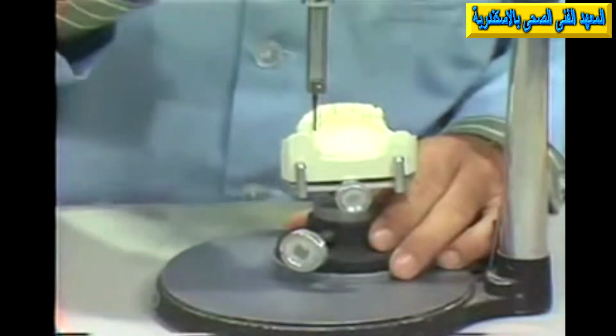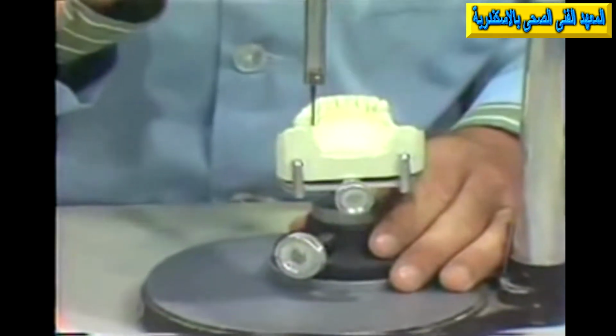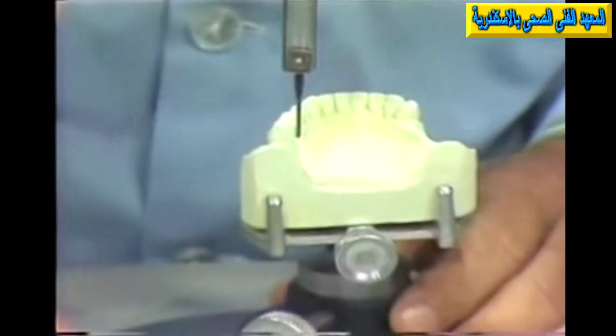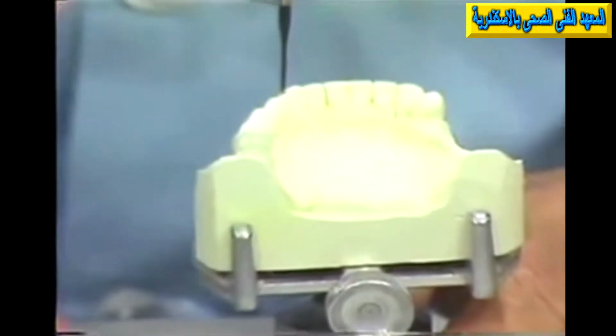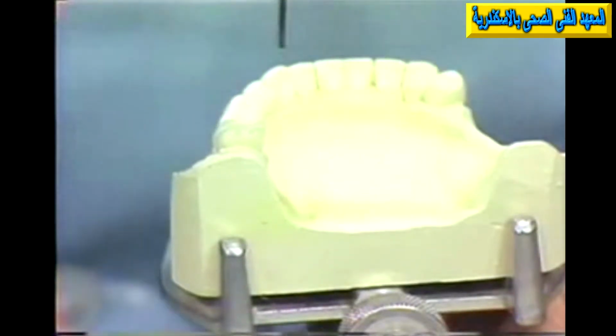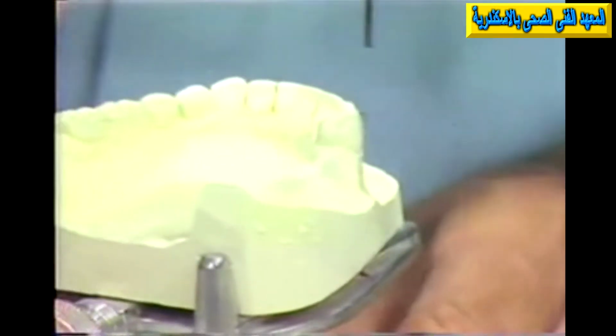The other thing we're interested in here perhaps would be number 4, the reciprocal plane on the opposite side of that same retentive area to prevent orthodontic movement of the tooth as a result of clasp-generated pressures. And then there's a 5th consideration, namely that of aesthetics, which we could mention a little more on a little different model.